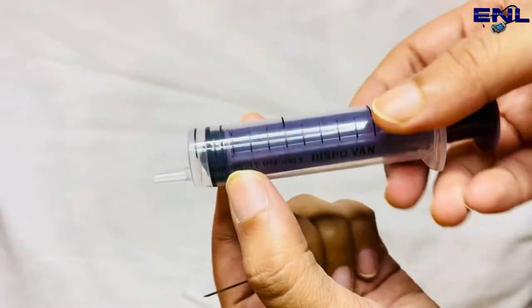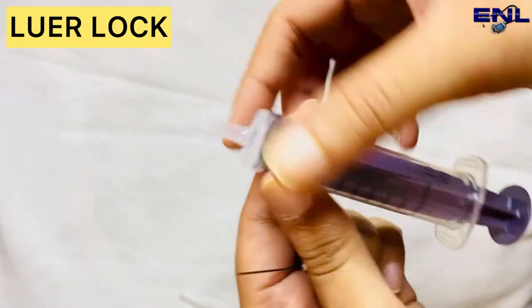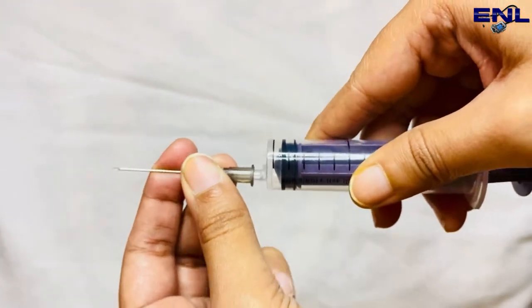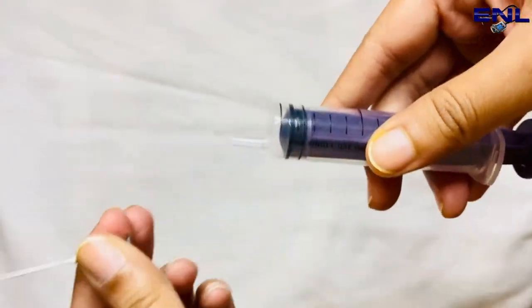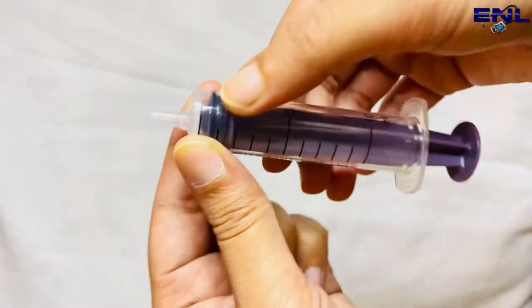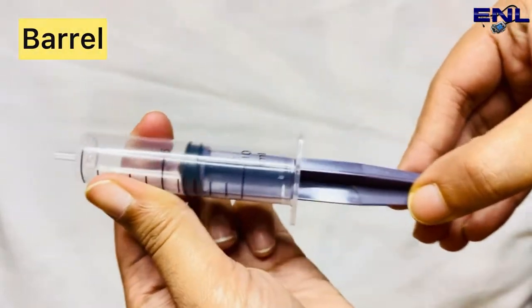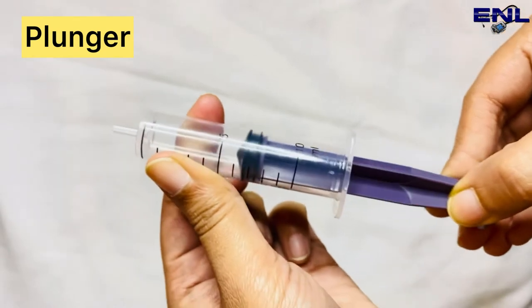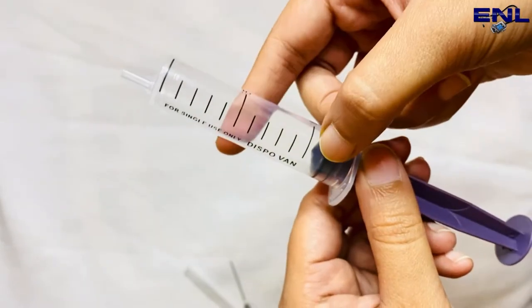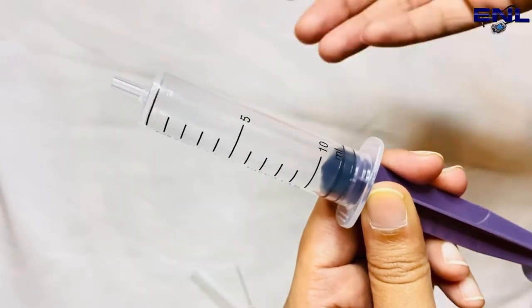If we talk about the syringe part, this is known as lure lock. What do we do with the lure lock? We fix the needle. Then this plastic body is known as the barrel. And this is known as the plunger, through which we push the medicine. And also we have marked calibrations here.